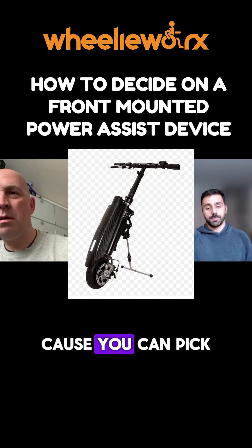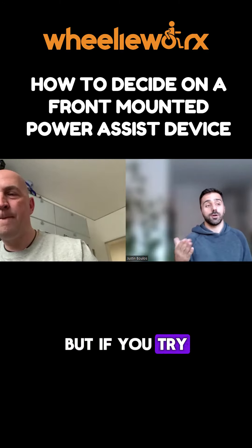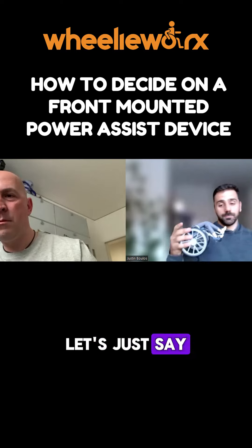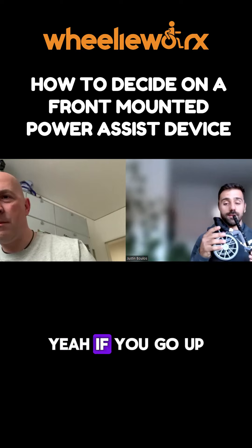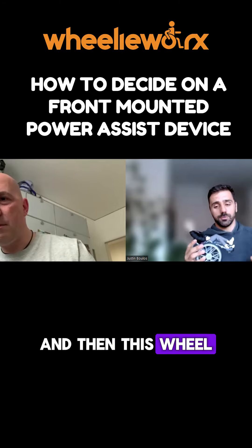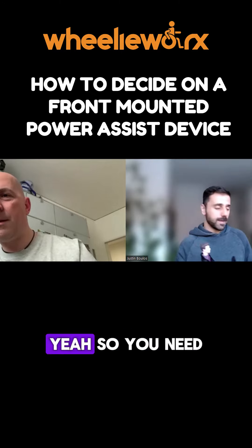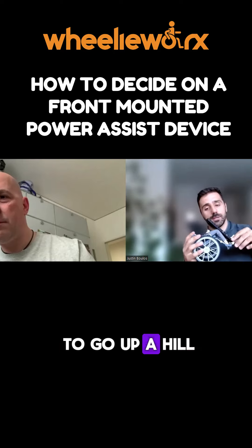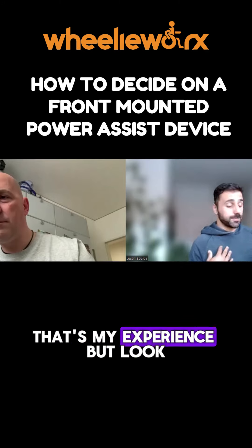For those really small wheels, they're awesome in terms of portability — you can pick it up with one hand and chuck it into the car. But if you try to go up a hill, all the weight is on the back wheel and this little wheel will just spin out — it doesn't get traction. You need more weight; if you have a tiny wheel and try to go uphill, it's going to slip backwards, not forwards.